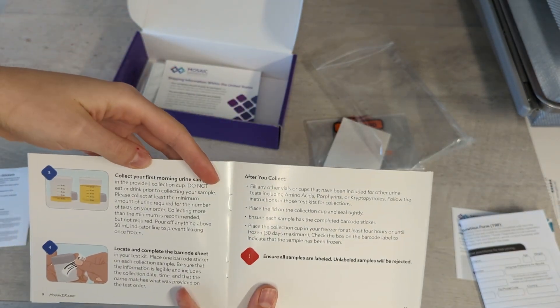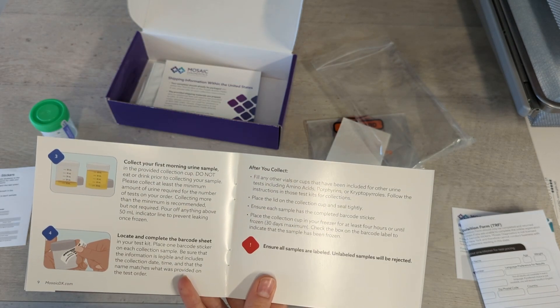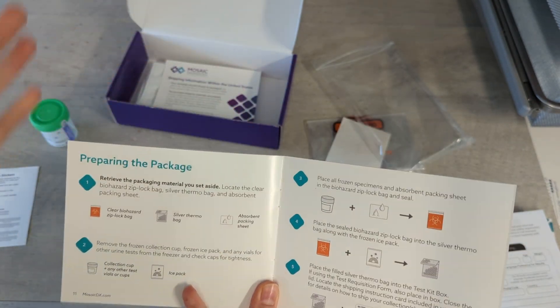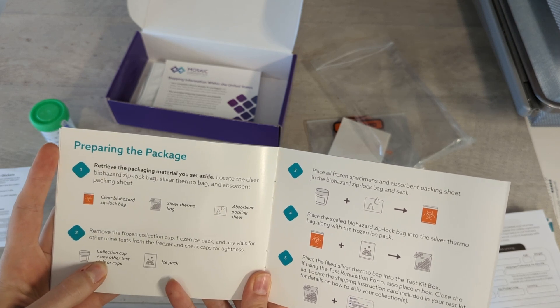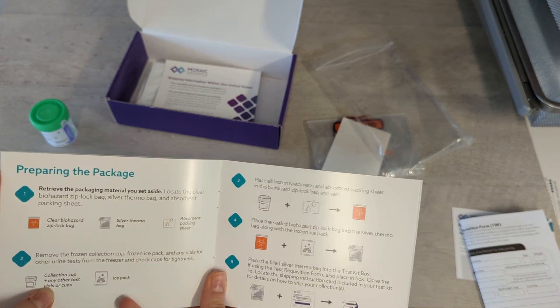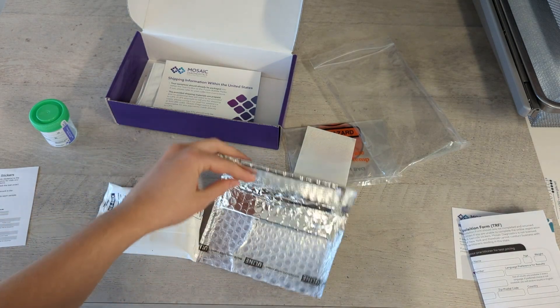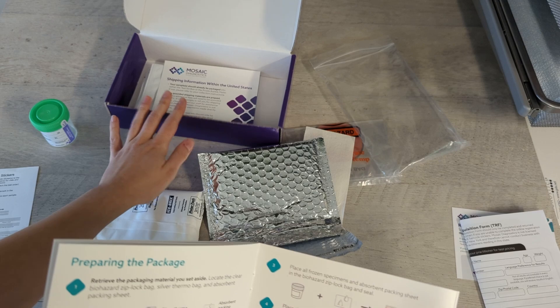We are going to collect our first morning sample — do not eat or drink anything beforehand. Make sure to put your barcode on the cup before you put your sample in, and record the correct time of collection. Then you are going to put this sample in the freezer. Once it's frozen, take it with the ice pack and put it in the biohazard bag with the absorbent pad, then into the thermosilver bag, and then into your test kit.